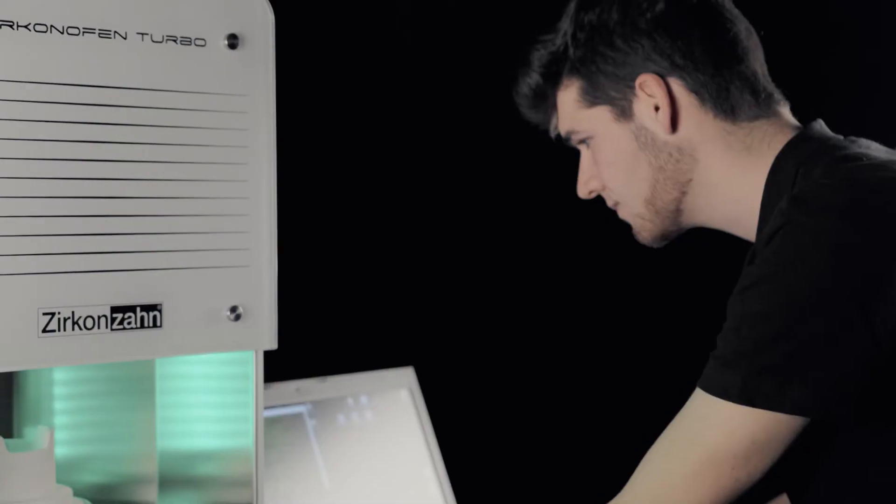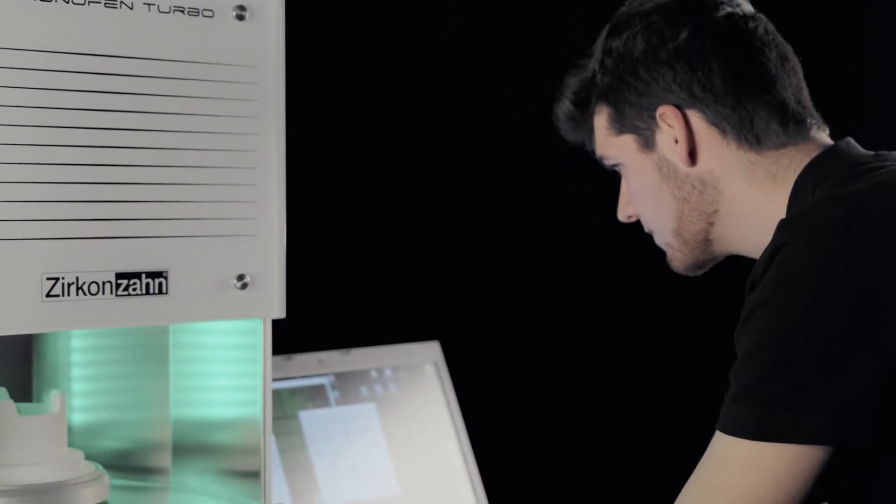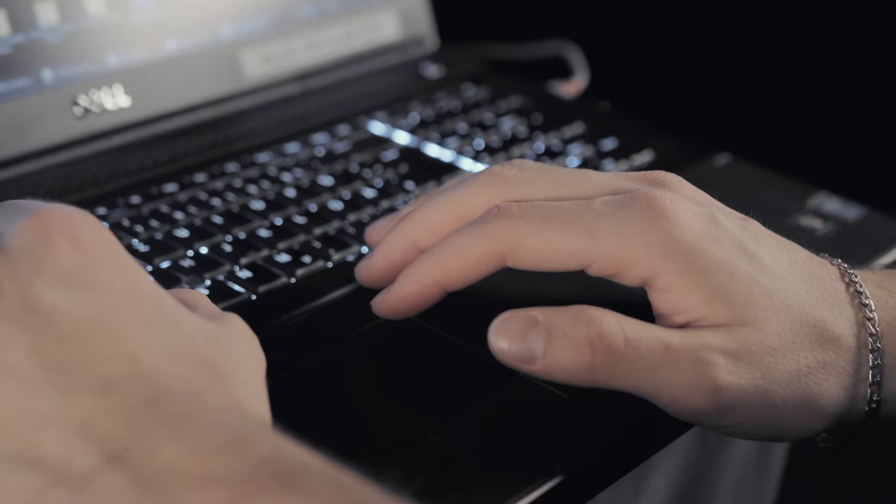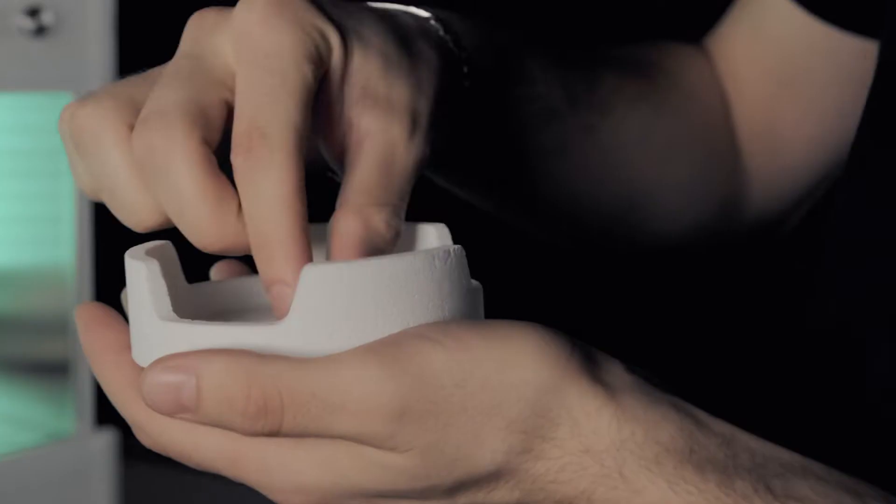Full of enthusiasm and driven by a relentless desire to offer our customers only the best, we have set ourselves a new goal: to develop a sintering furnace that simplifies the workflow.